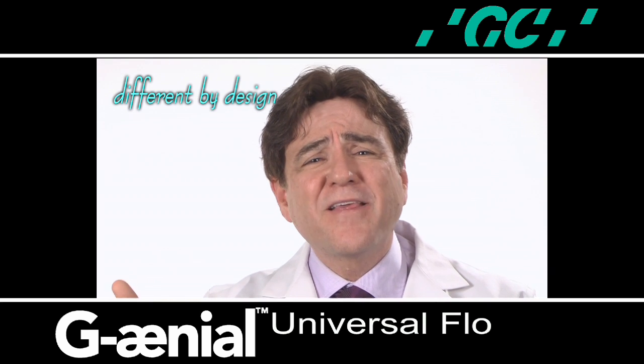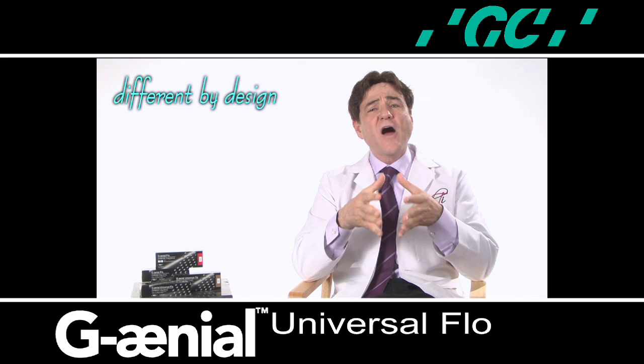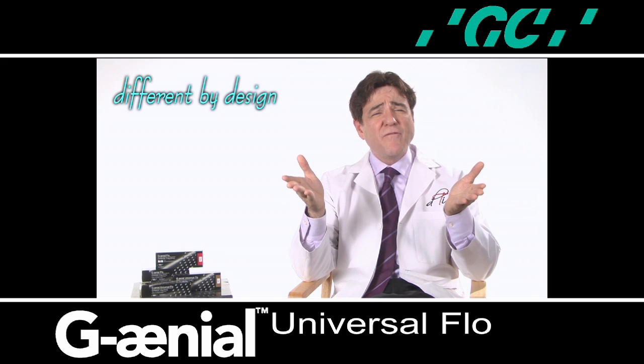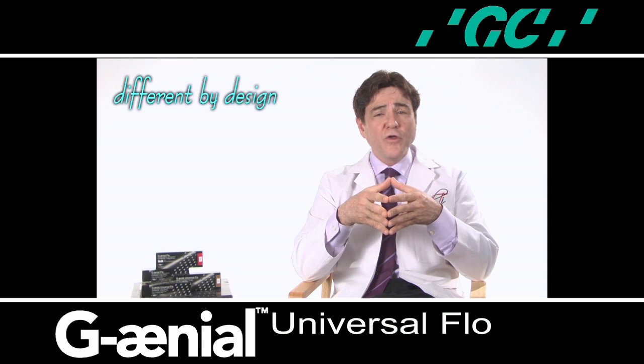And what other material has so many uses than these next-generation flowables? The following presentation will describe a few of those many contemporary applications utilizing G-aenial universal flow.